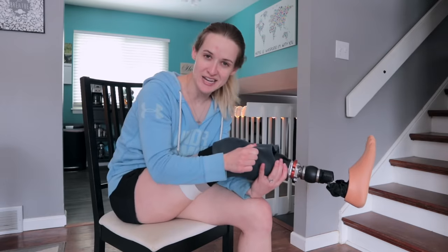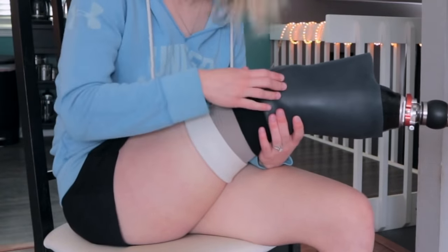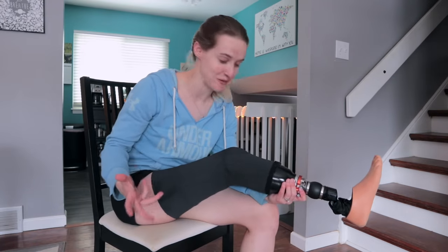The way that seal is formed is by a couple of different means. This right here is the sleeve — it goes on the outside and forms a seal with the liner. When I put my liner on I roll it down; it's a pretty rubbery situation. When I roll them up together it forms that seal, and this area down here which performs the passive suction is allowed to actually perform suction because it has that seal.